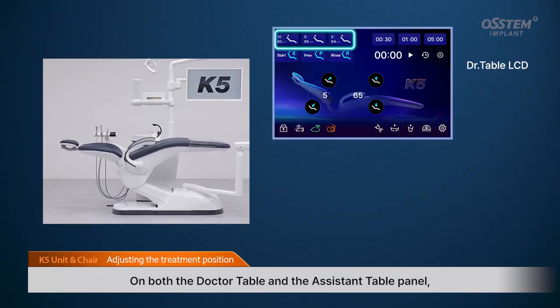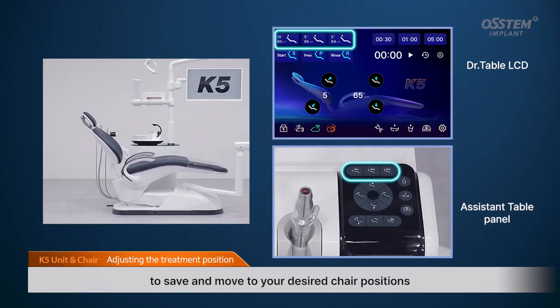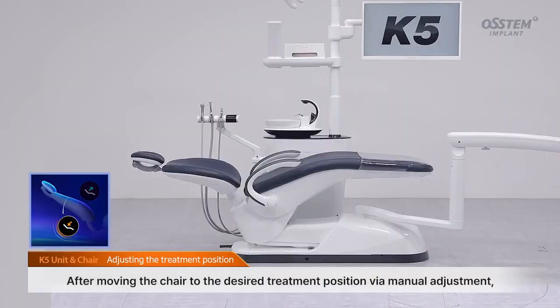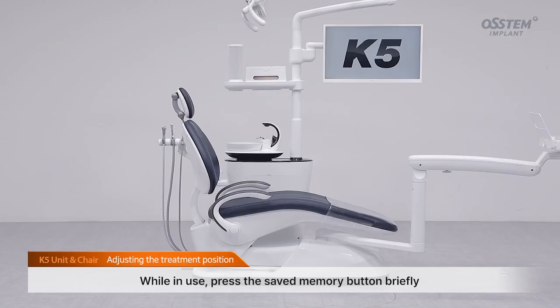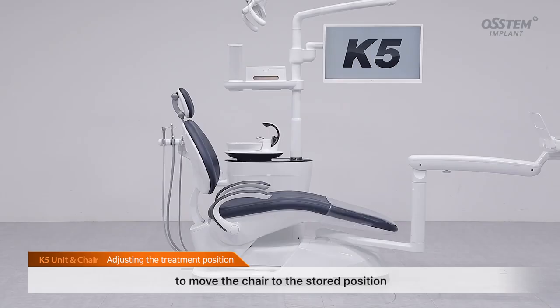On both the doctor table and the assistant table panel, there are 3 memory buttons that allow you to save and move to your desired chair positions. After moving the chair to the desired treatment position via manual adjustment, press and hold the first memory button until the beep sound is heard to save the position. While in use, press the Saved Memory button briefly to move the chair to the stored position.